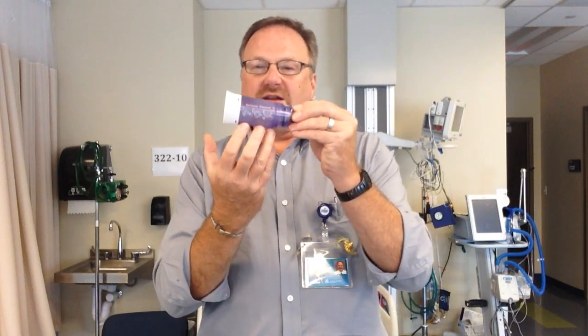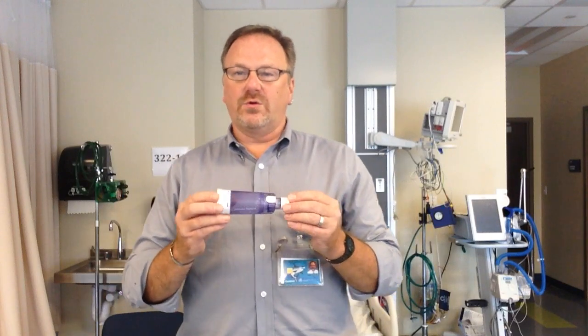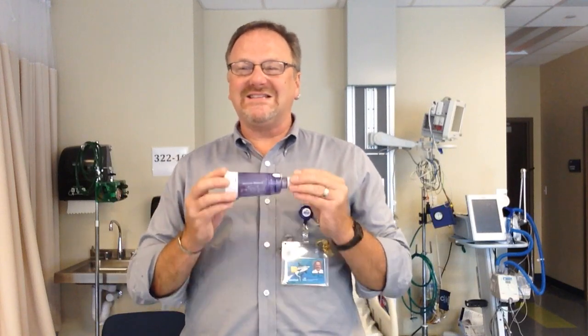The spacer also allows the larger particles to rain out — to fall out in the chamber. Rain out is not as critical for albuterol, but it is for inhaled corticosteroids. One of the side effects of inhaled corticosteroids is thrush, a yeast infection of the mouth. So after a patient takes inhaled corticosteroids, they should rinse and spit the water out — not swallow, rinse and spit. The best thing to do is brush the teeth, but many patients won't do that, so rinsing and spitting is the minimum.